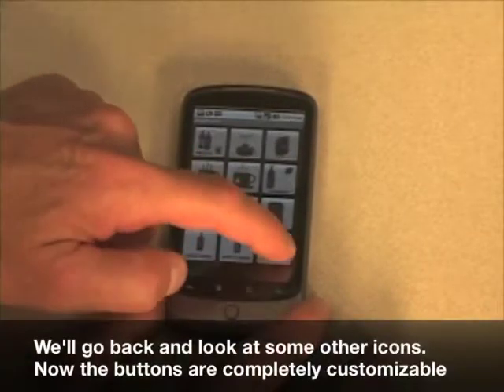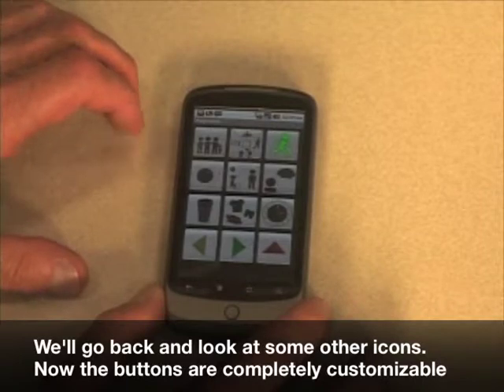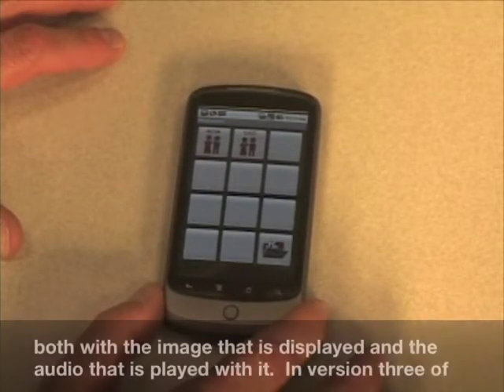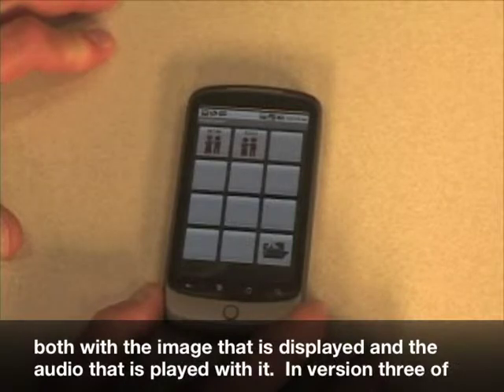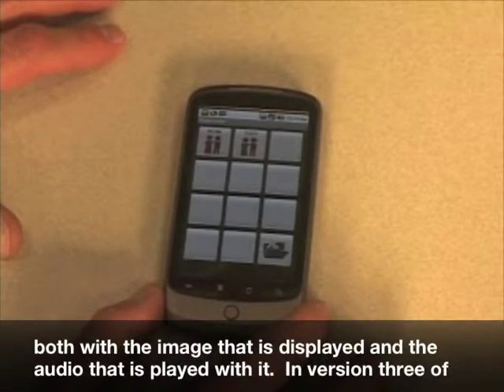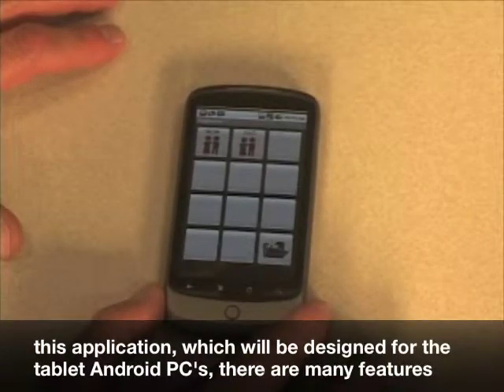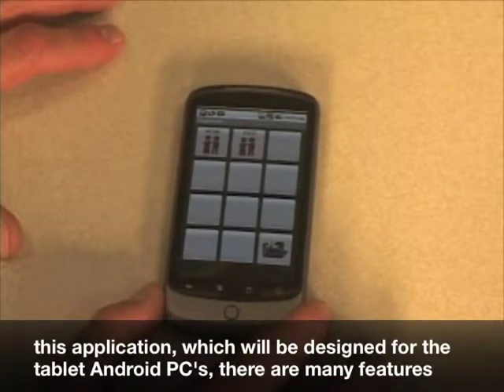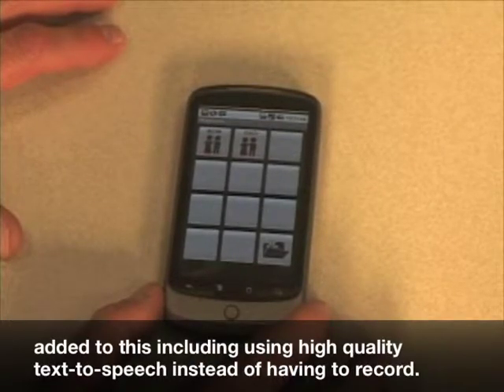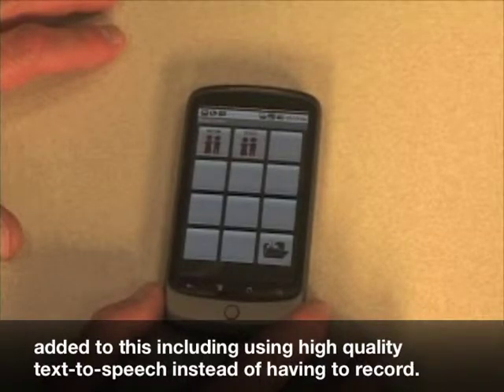We'll go back and look at some other icons. The buttons are completely customizable, both with the image that is displayed and the audio that is played with it. In version 3 of this application, which will be designed for tablet Android PCs, there are many features added, including using high-quality text-to-speech instead of having to record.